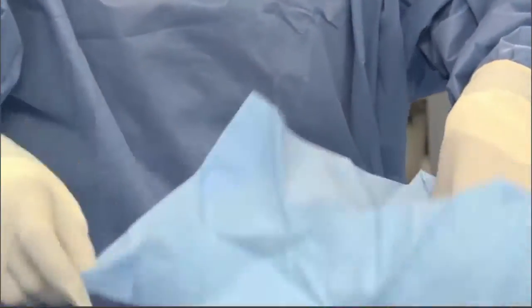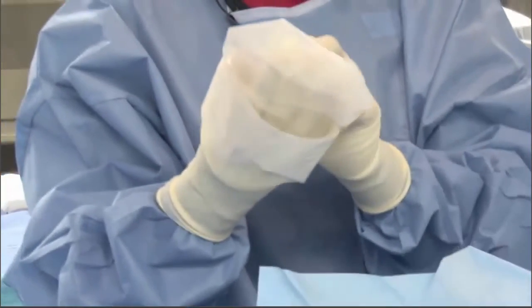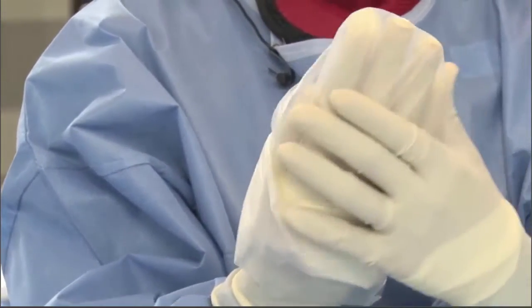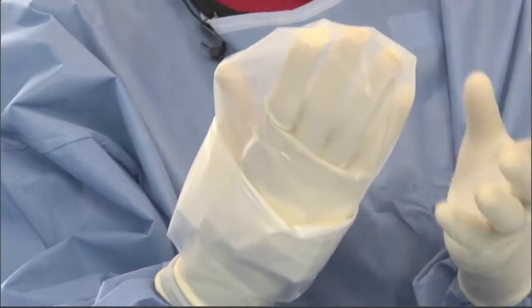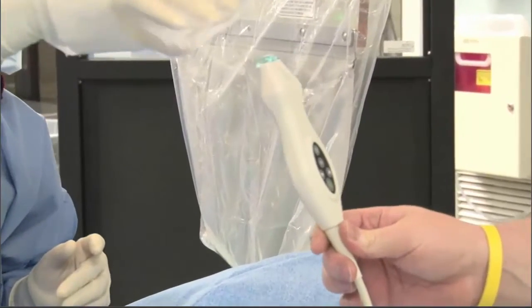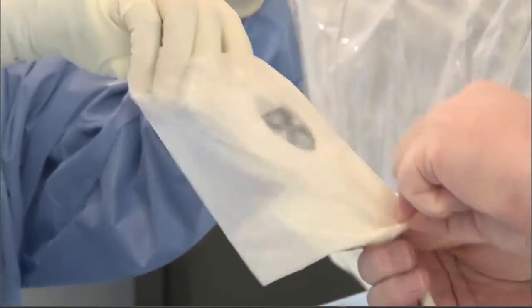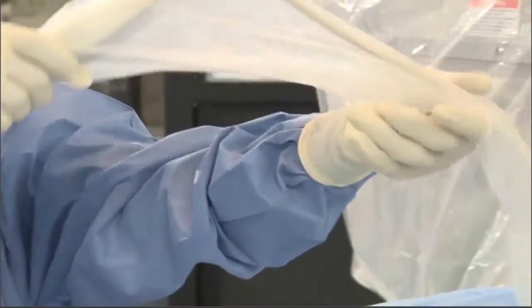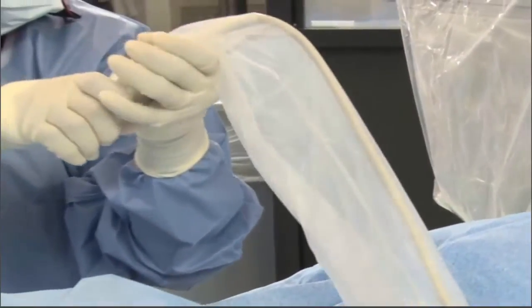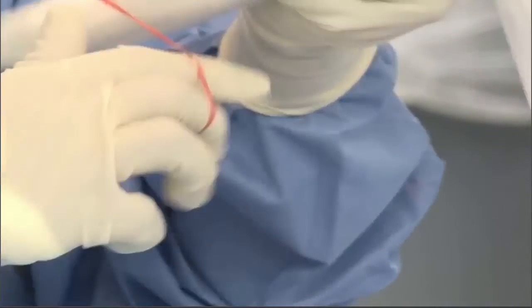The sterile probe kit includes sterile gel, bands, and a sterile probe cover. The probe cover is acoustically transparent and needs to be fully rolled up. Apply a layer of ultrasound gel on the acoustic window of the probe head. Place the probe cover over the probe head, carefully not wiping off the coupling gel, and cover the probe and cable with the probe cover. Smooth the probe cover over the acoustic window to remove any air bubbles or folds, then use the bands to hold the probe cover in place.